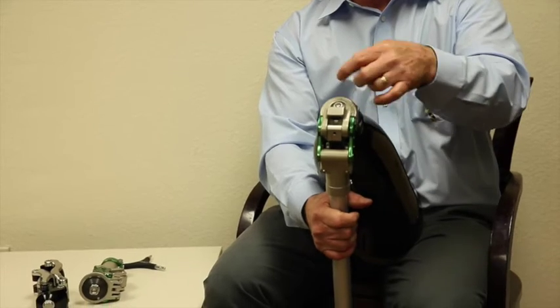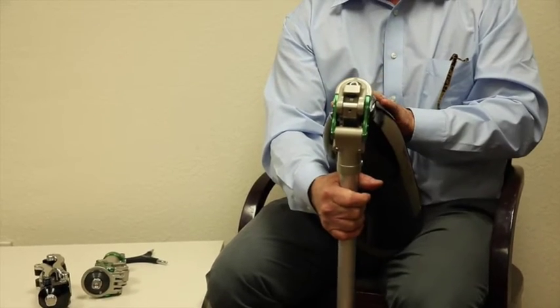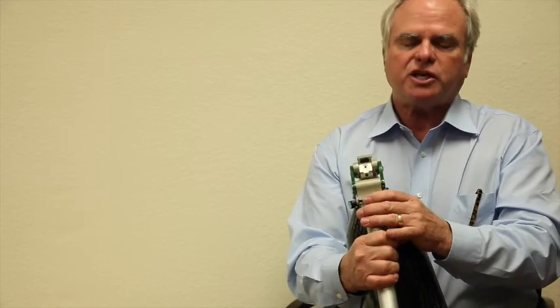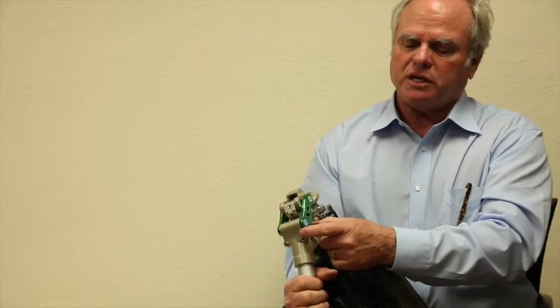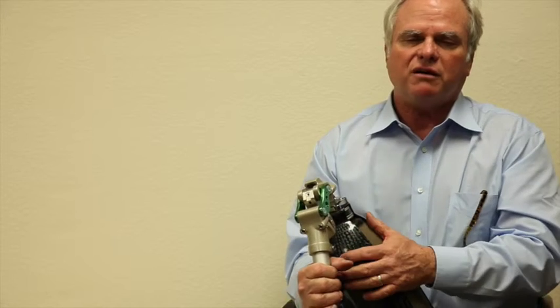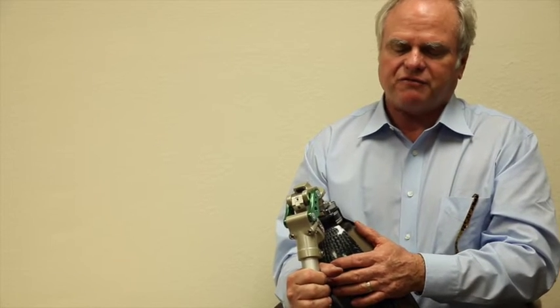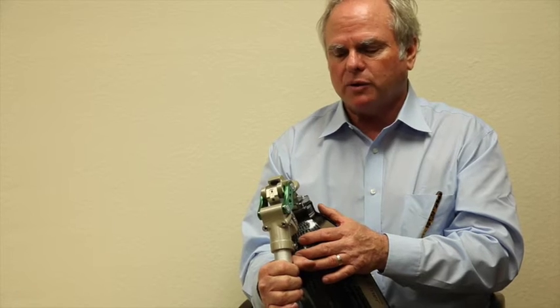So simply stated, we have rotation of the socket, you have a little bit of slide with this screw, not a tremendous amount. And you have the ability to change the friction and you have the ability to change the strength of the 5-bar or whether it's going into that safe mode.